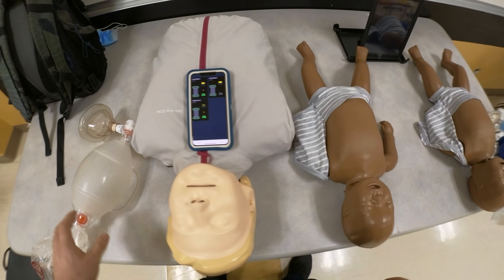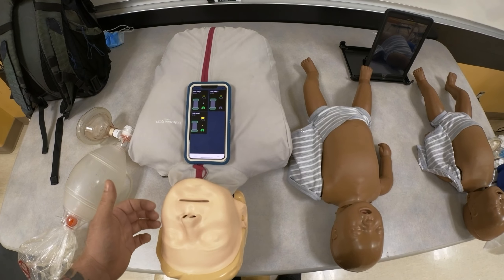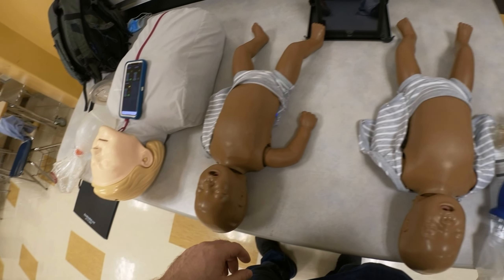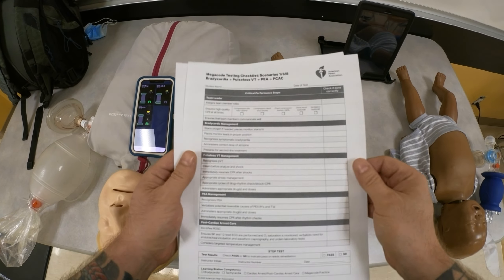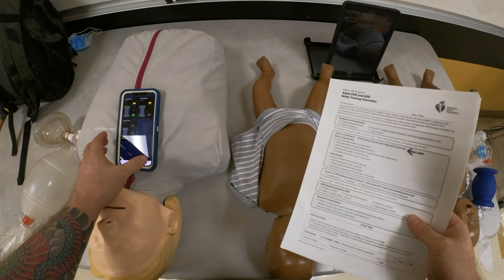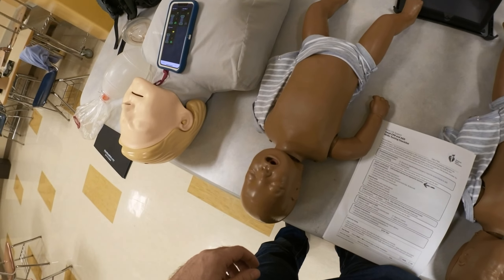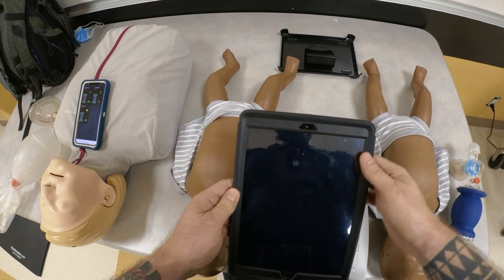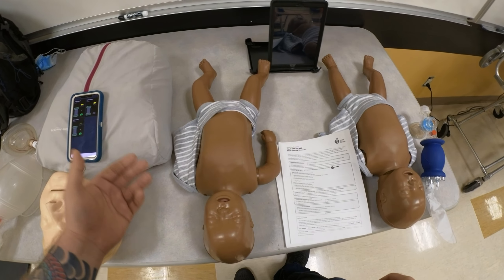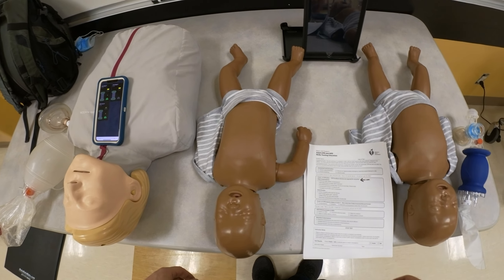The importance of using these devices during practice is so that students are familiar with them — they know what instructors are looking for in terms of depth, rate of 100 to 120, and delivery of ventilation. So whenever you are actually testing them utilizing the AHA skill sheets, you can objectively measure them on all these parameters. Connect it on your phone or on the iPad so students can see it on the bigger screen. I'd just put it next to them while they're practicing and walk around observing in real time. This is how you connect and utilize your feedback devices. Thank you.